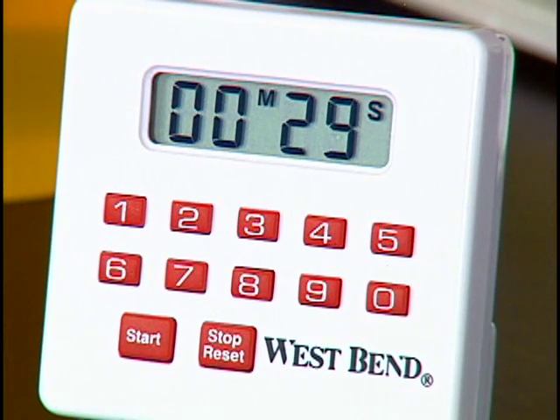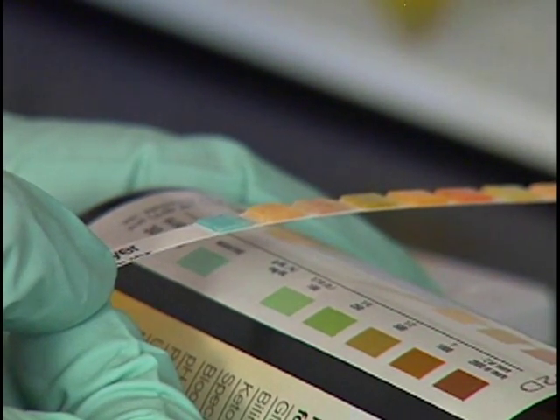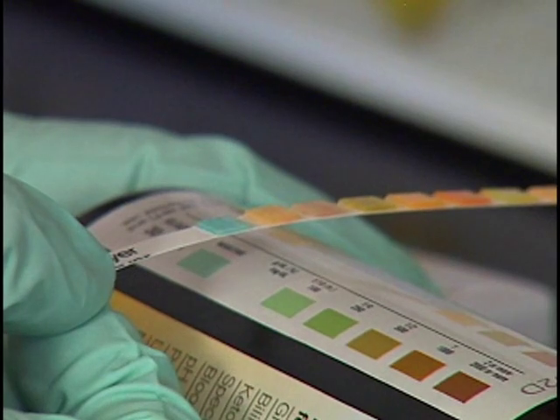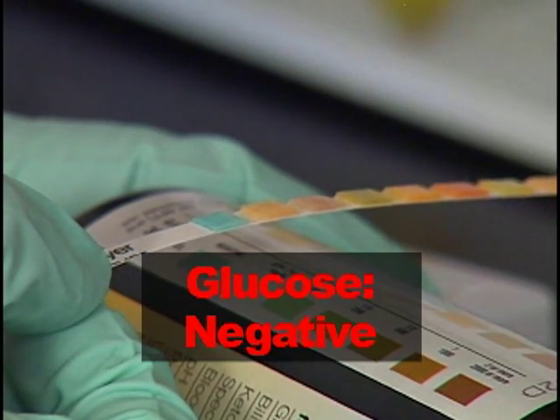When your timer reaches 30 seconds, carefully match the color of the glucose reagent pad with the appropriate color block in the row of blocks. Look at the interpretation guide provided above each color block on the chart to determine the result. Make a mental note of this result. The glucose result for this test is negative.